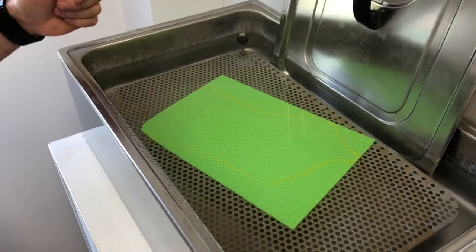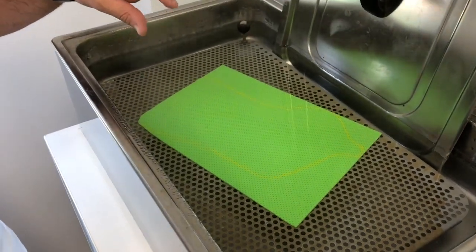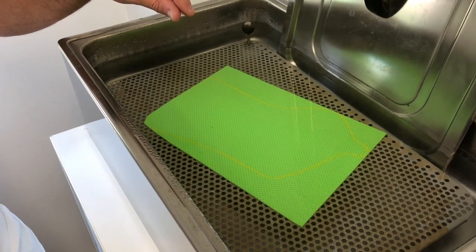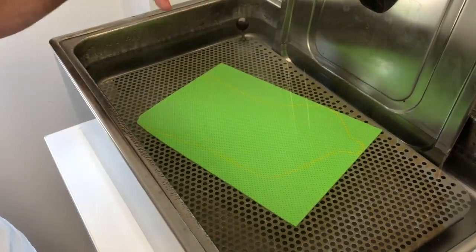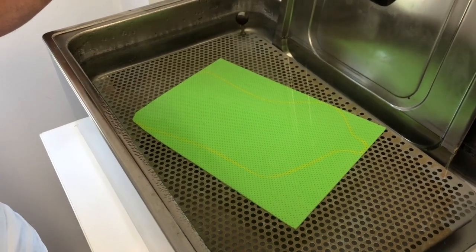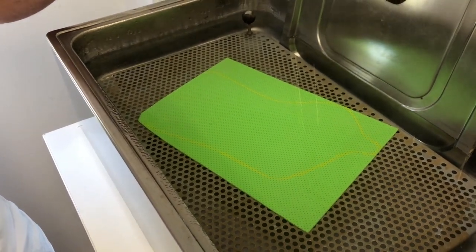You can see that this plastic is heavier. This is the Orficast Colors product. It is denser than water, so therefore it sinks into the water. You'll find it probably heats through a little quicker. It's thinner, but also that it sinks to the bottom.